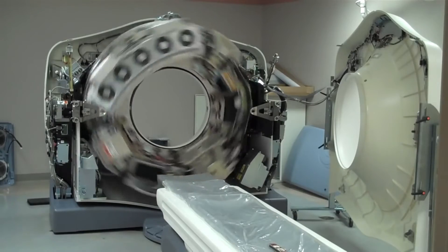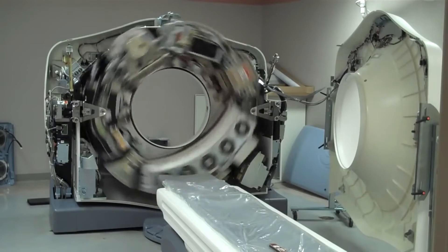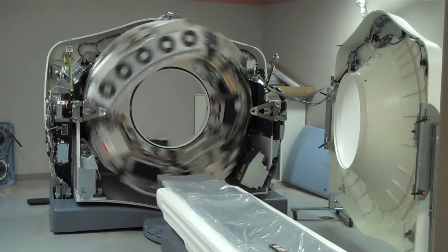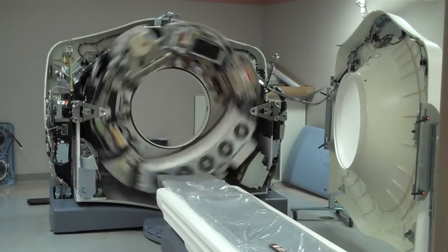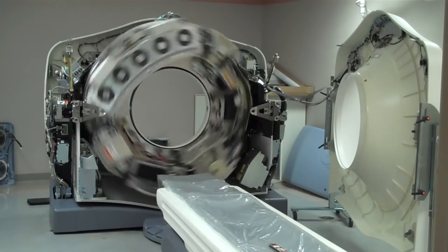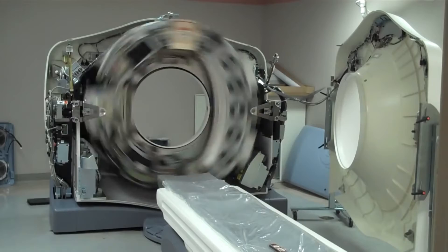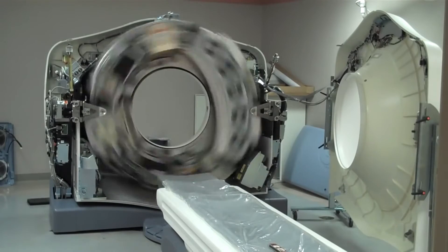These models are perfect for mid to high volume locations and provide fast scanning and excellent image quality. The 16 slice CT machine can perform a wide variety of sophisticated and complex imaging procedures. It provides full organ coverage with high resolution imaging, but is not considered adequate for detailed cardiac analysis such as coronary vessel analysis.